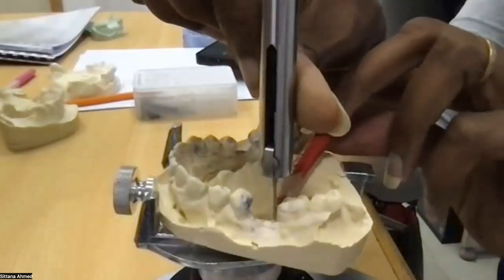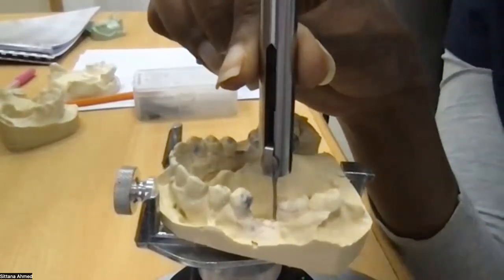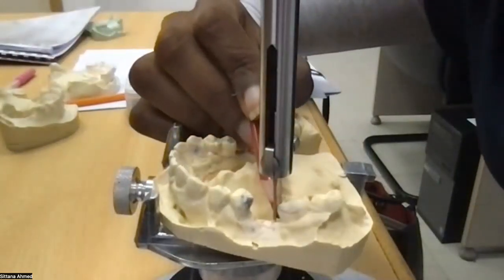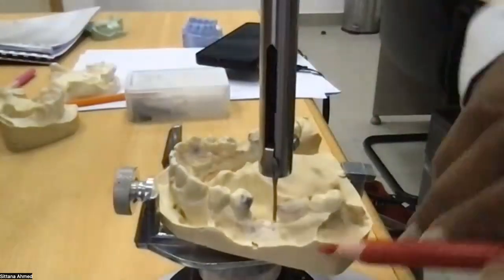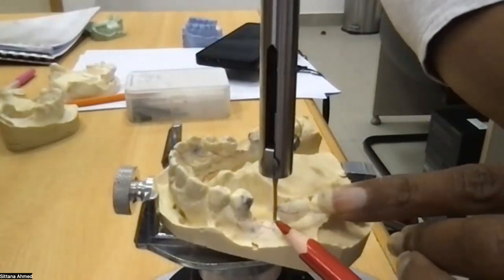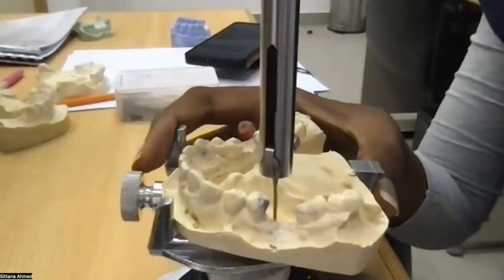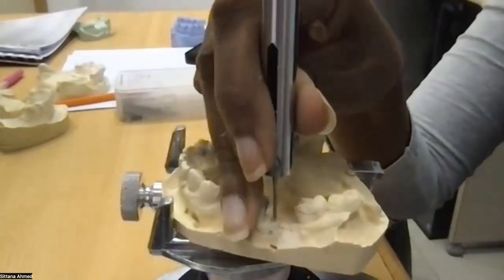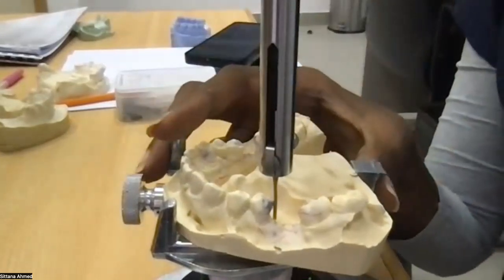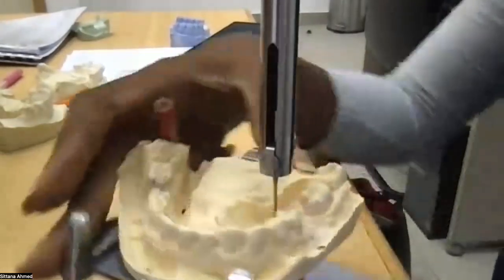So there is another undercut here. Is it clear in the camera? Okay. So again, there is a little triangle here in this area. This is what we call an undercut, proximal undercut. Okay? And here, when I move the cast to evaluate the other tooth, you can see again I also have an undercut, but in this case it is much bigger. Okay, let's keep going and examine.